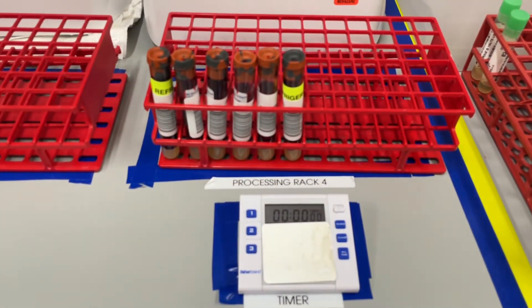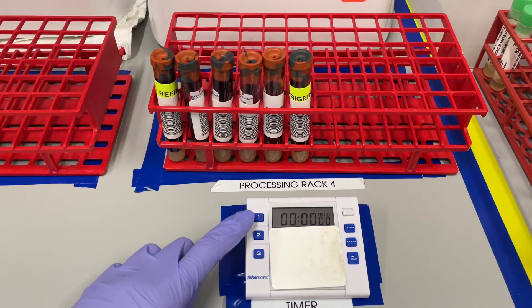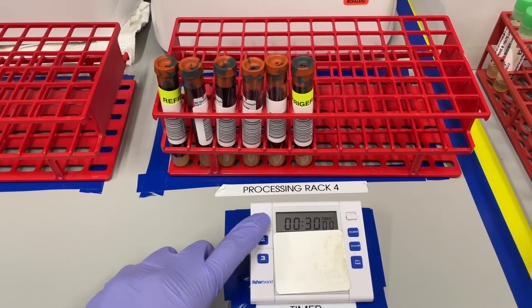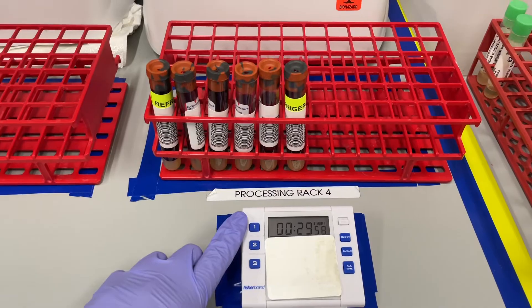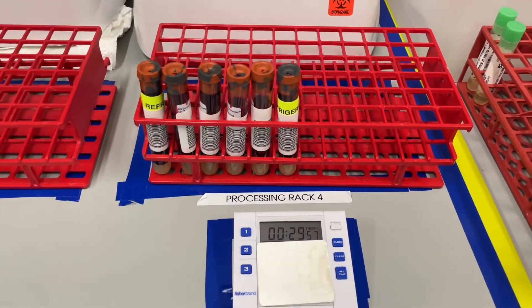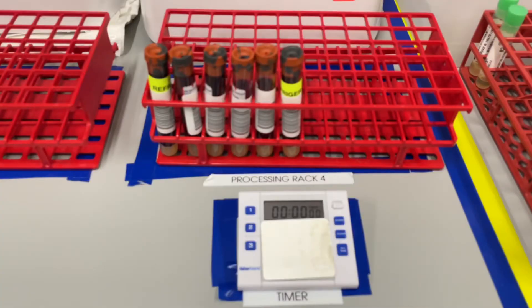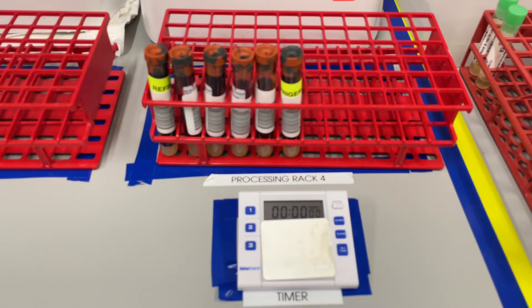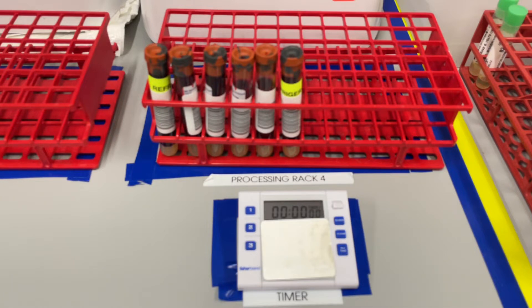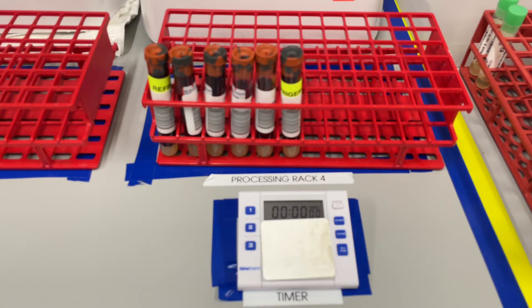After I drew my patient's blood, I'm going to have my SST sit in an upright position for 30 minutes to allow it to clot. These tubes in front of me are your clot activator tubes. They have a gel at the bottom of the SST — also known as the tiger top tube.